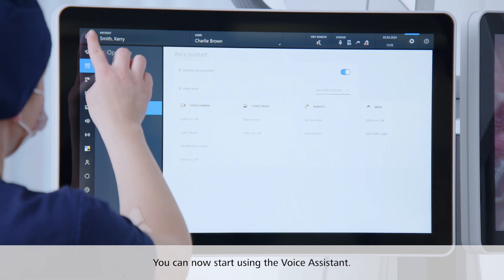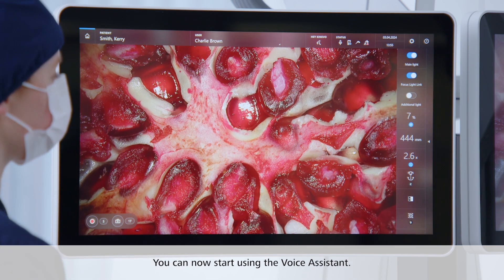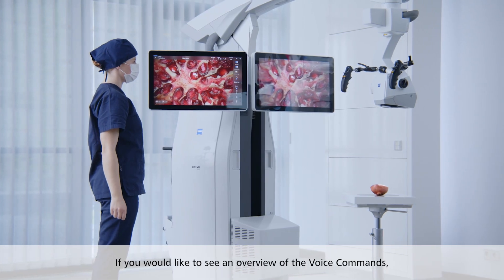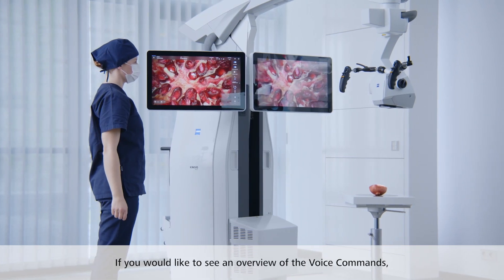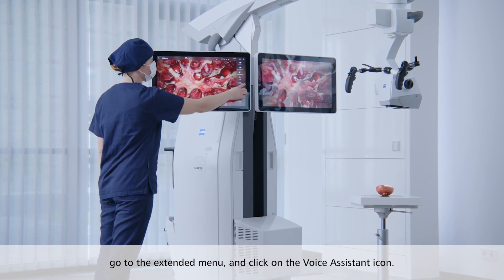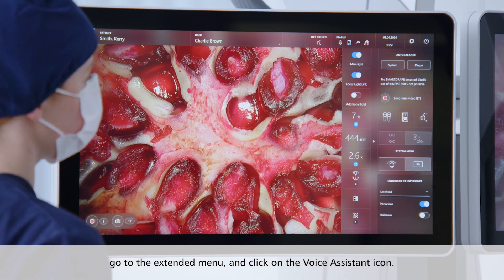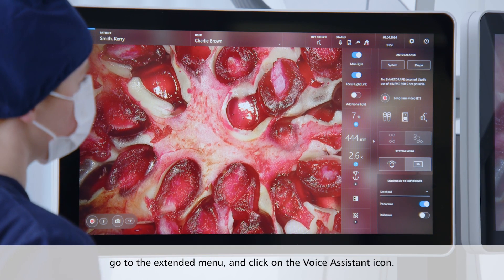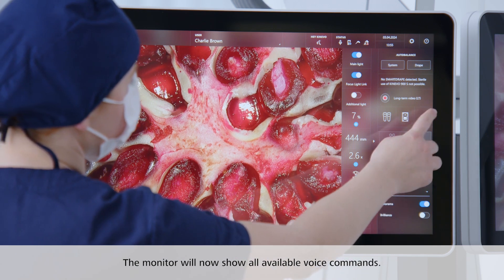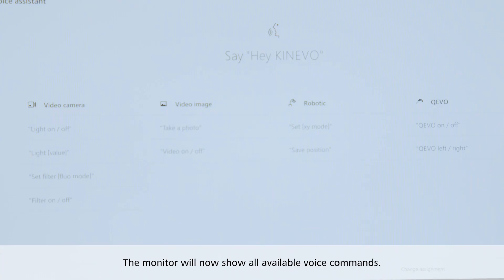You can now start using the voice assistant. If you would like to see an overview of the voice commands, go to the extended menu and click on the voice assistant icon. The monitor will now show all available voice commands.